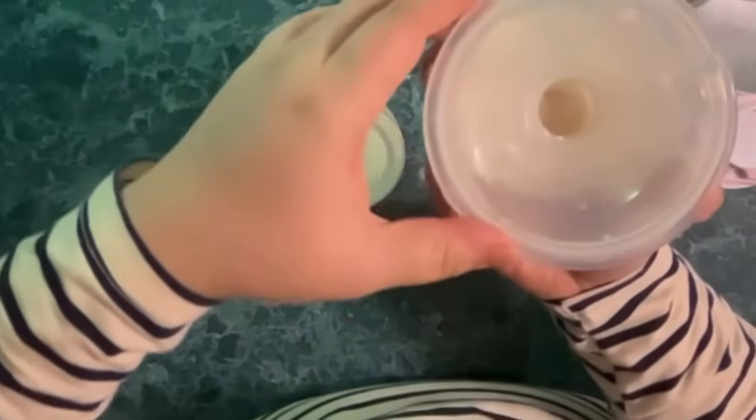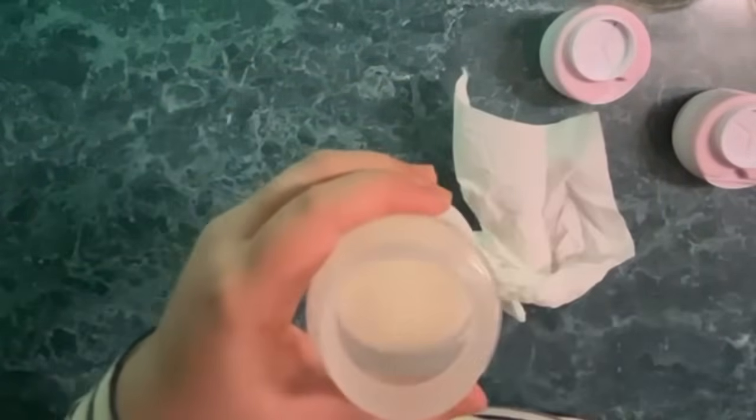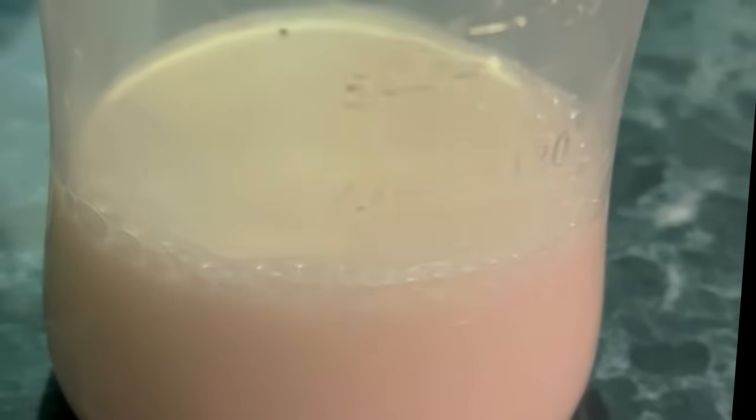So far I've been able to express — I think this is three ounces of milk, which is enough for my feeding, and I can always add to this milk later on. Overall, this is a budget-friendly breast pump compared to high-end breast pumps like Elvie and Willow, and I think it's more convenient to use than the Motif Duo with the long attachments.